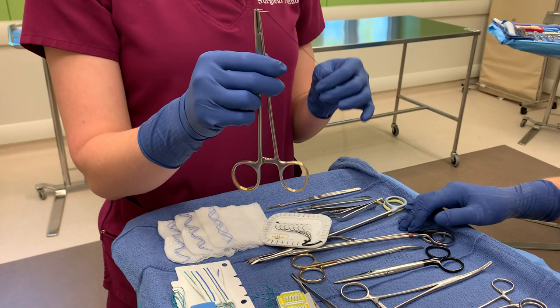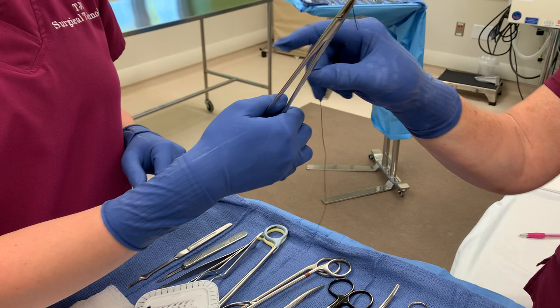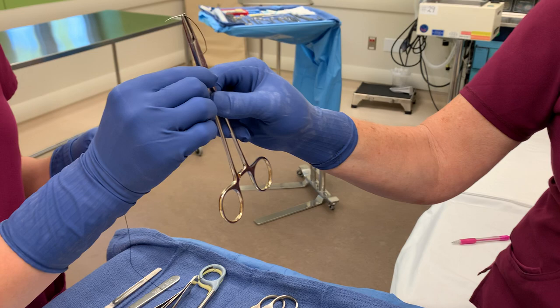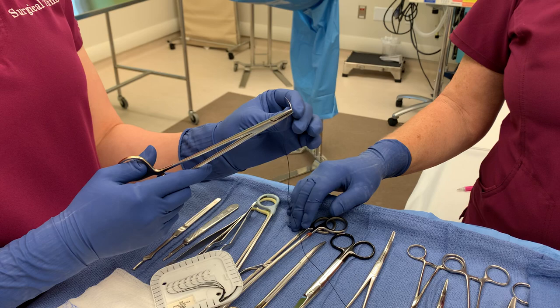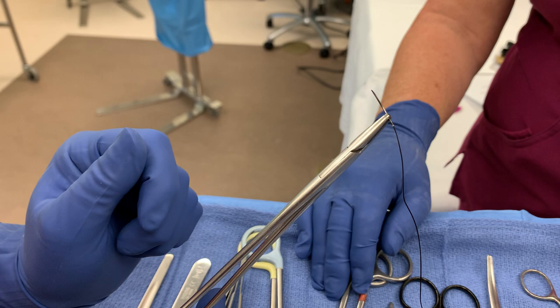To pass this to your surgeon, you want to pass it exactly like they are going to use it. You pass it with the sharp end of the suture needle facing their sternum when they have it in their hands — just like this, so it's facing them, and then they work with it just like that. Make sure you don't pass it incorrectly. If I passed it facing the other way, that would be wrong — they can't use it and would have to flip it. The sharp end always has to be facing their sternum or their heart. If they readjust it, you need to pass it correctly the next time. If they adjust the needle at all, they may want it more at an angle. Never have it angled down — you can have it straight on or angled a little bit.